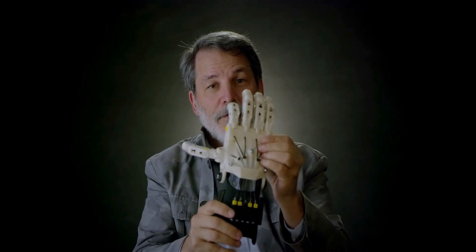3D printers are these magical machines that are really not rocket science. A 3D printer of the sort that our volunteers use is now available for as little as $400. They take designs that other volunteers have made, they print the parts, and they assemble them like Lego sets. Then they string them up so that the strings connecting the different parts cause the hand to make a fist when you bend your wrist.